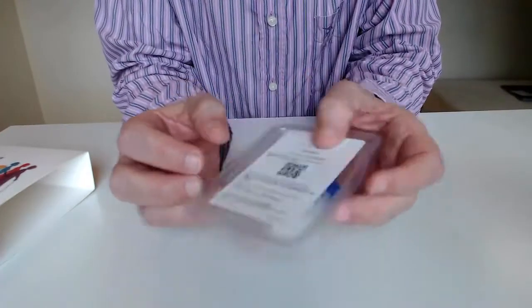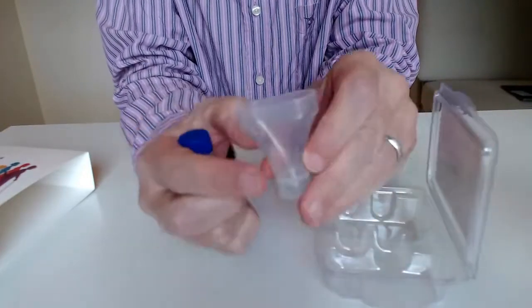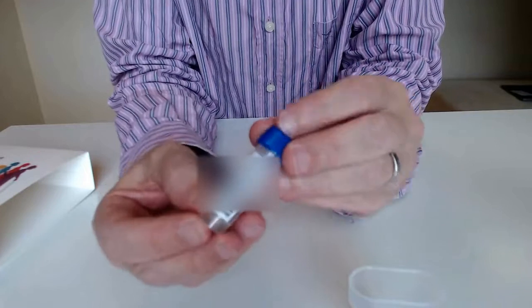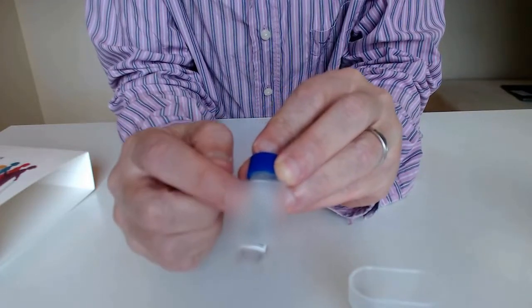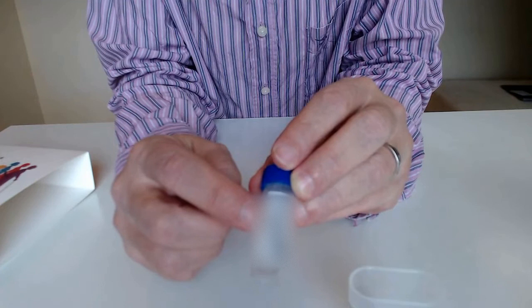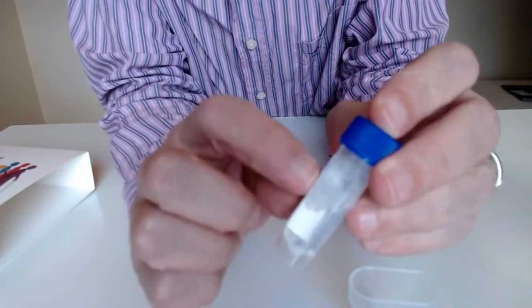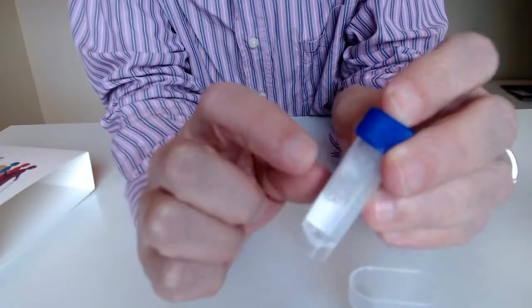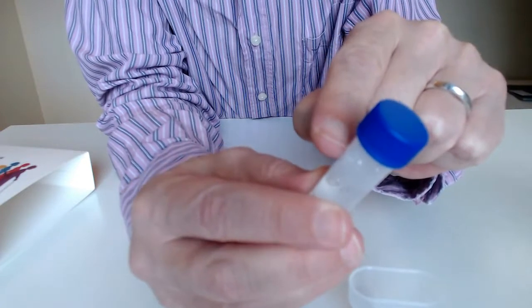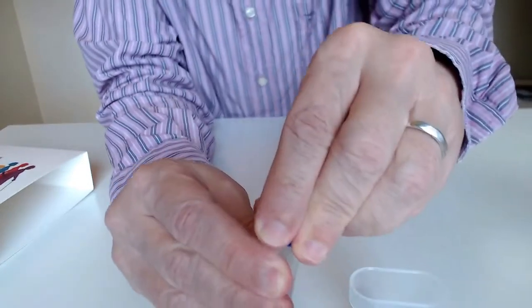Here's the actual collection kit. Inside we have a funnel and a small tube. The tube has a barcode with a number on it, and this number matches the number on your card — this is how they identify that the sample comes from you. When you're spitting into this tube you need to reach the 5ml mark. There are marks along the back but they're very difficult to see, and it's harder once you start spitting. I suggest you find where the mark is before you start and maybe highlight it with a felt tip pen.